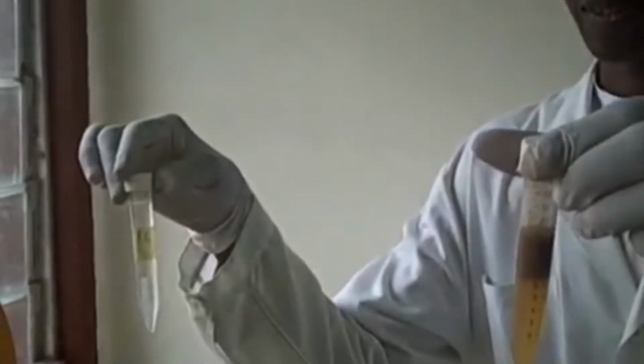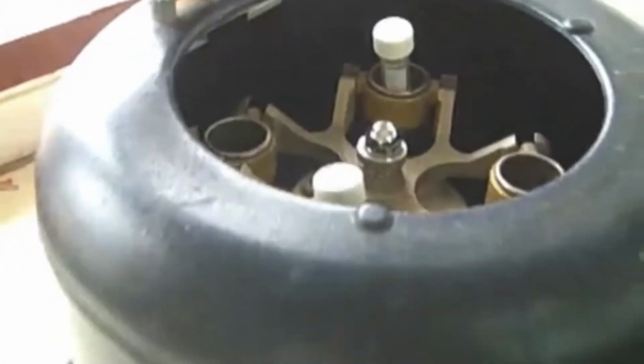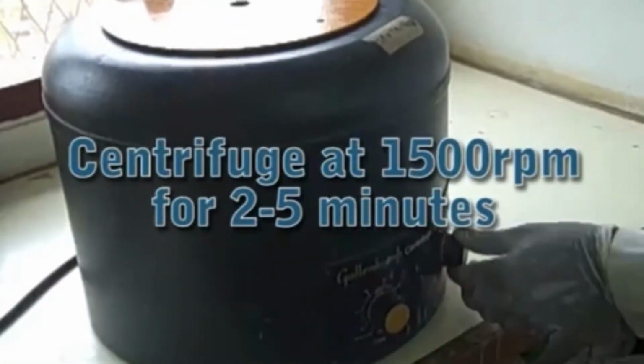Cover the centrifuge tube with the lid and mix the 2 layers very well. And this, the ether, is to dissolve any fat which is present in the stool sample to release the parasites. So put it in the centrifuge, balancing it. Centrifuge at 1500 RPM for 2 to 5 minutes.